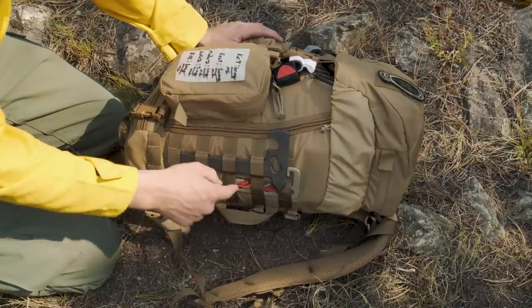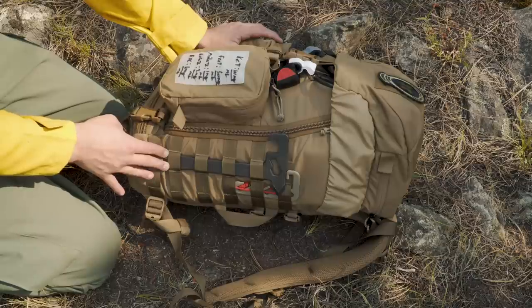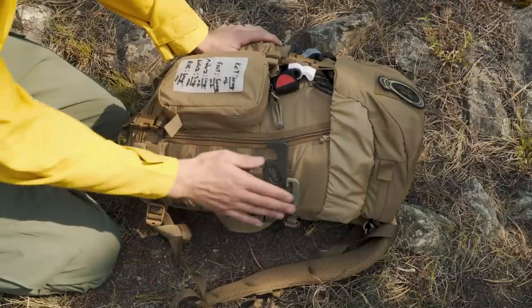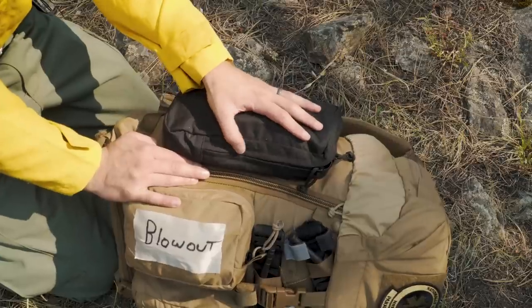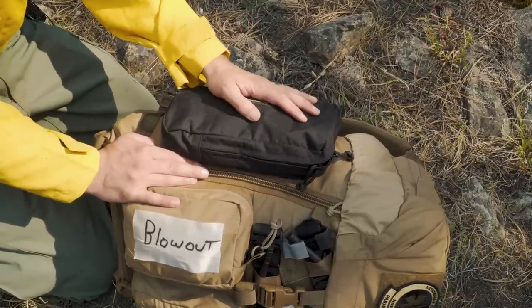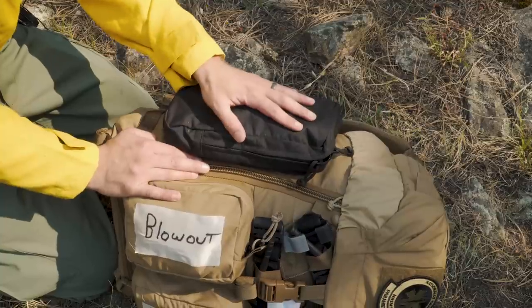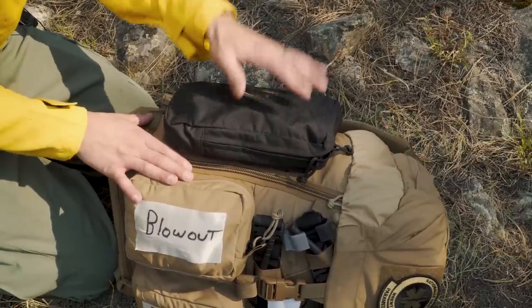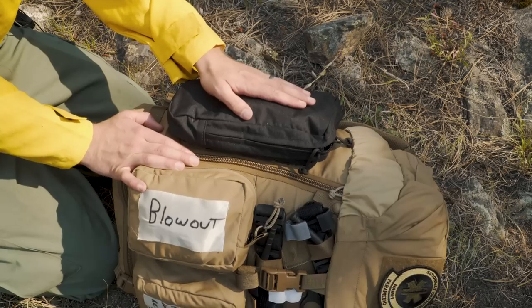Next to that I've got the Winkler Knives fire tool. Its application out here is relatively limited, but I've noticed that having a pry bar in basically any situation is super helpful. And then this pick can be used for any number of things, including escaping from ice. On the other side I still have the North American Rescue traction splint — their tactical traction splint. It's just a lot easier than the Sager or the Hare. It's basically tent poles that fold out and let you pull traction on a mid-shaft femur. That's really important because you can lose so much blood from the femur, which can be reduced by pulling traction on the leg. We're a ways from help out here in the Rocky Mountains so I want to do everything I can to limit blood loss, even if it's internal.